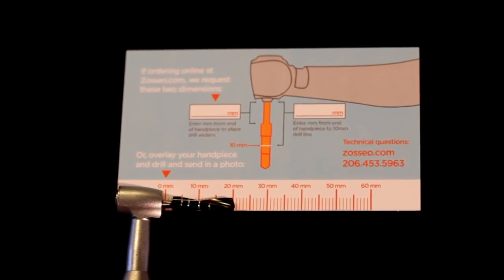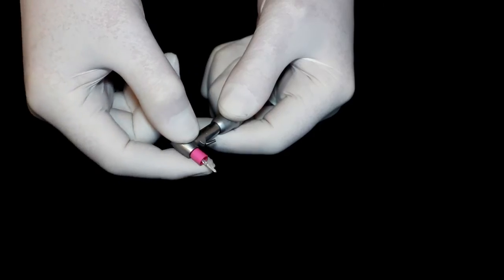This model requests the desired length of your stops and the width of drills you use when ordering. Cold sterilization is recommended to prolong the life of the polymer lining. There are other widths available for special orders.